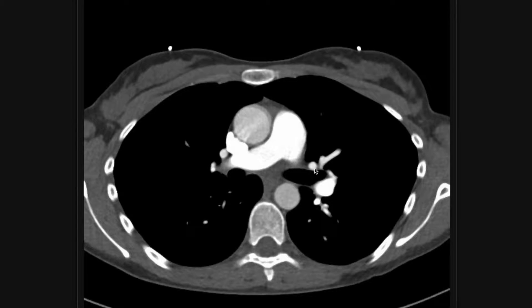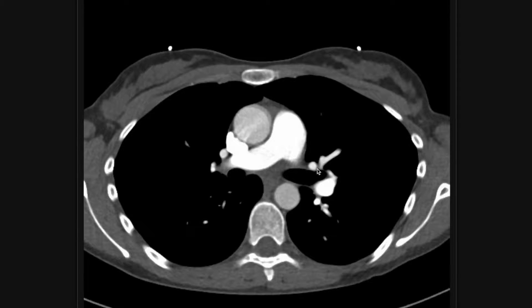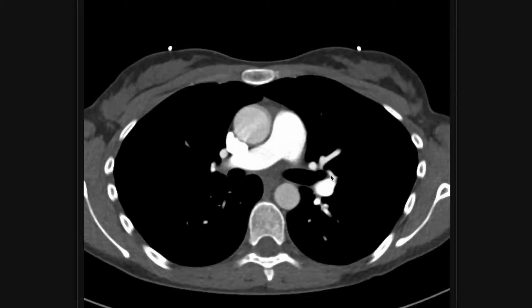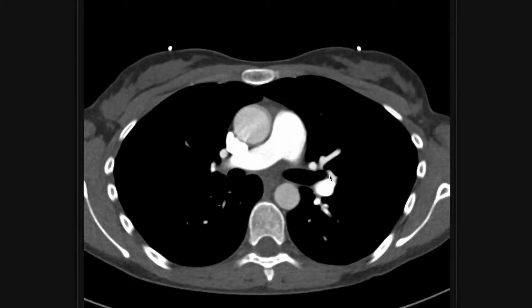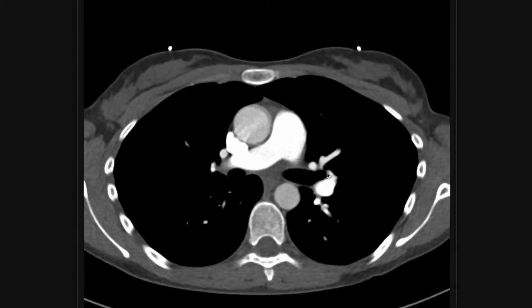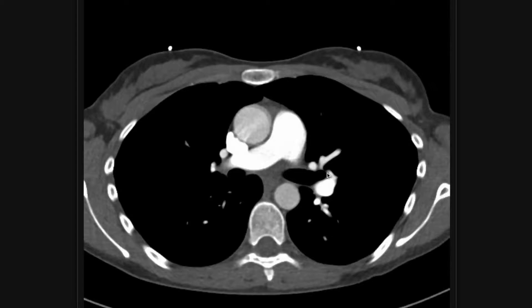In this video, I'm going to review how to interpret a CTA of the chest pulmonary embolism protocol. This is a very commonly ordered scan out of the emergency department because people come in with symptoms that are concerning for pulmonary emboli all the time.